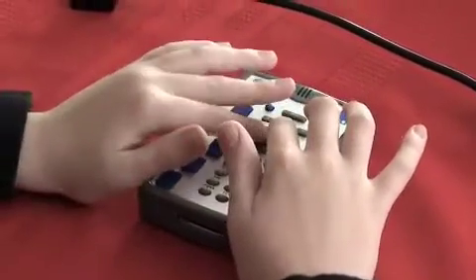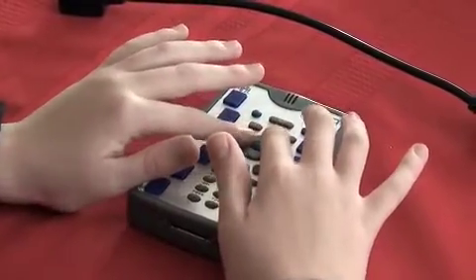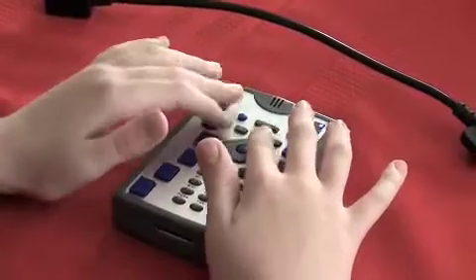Then to the left of Select is the left arrow. You can press that to get back to the previous menu or the previous character in a document. Applications menu. And we're back in the Applications menu.